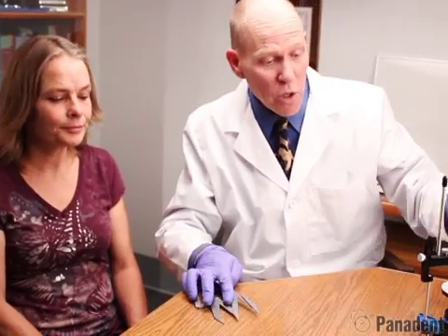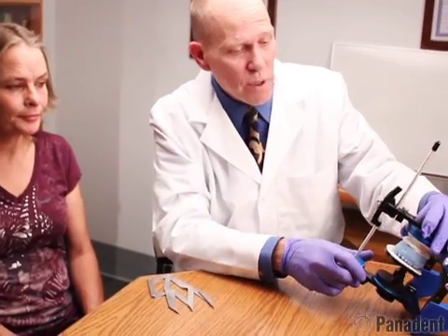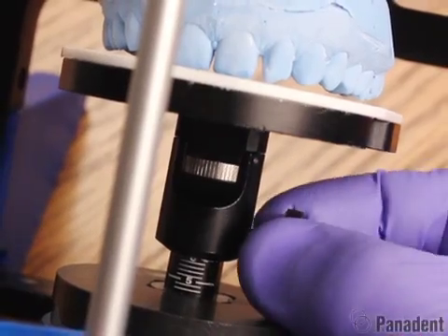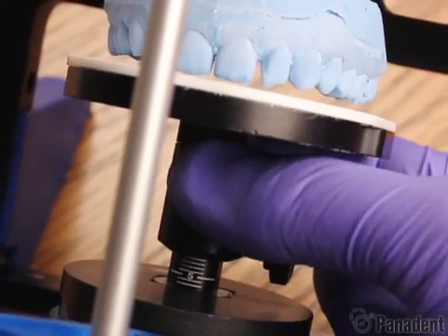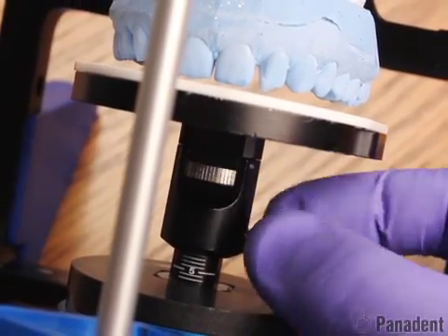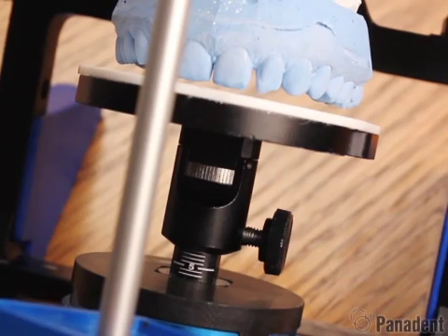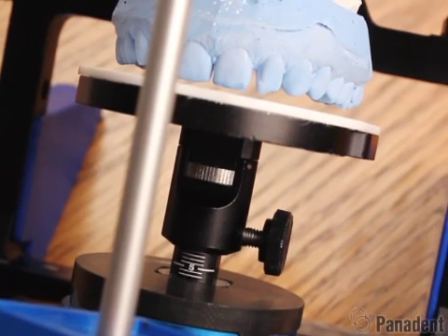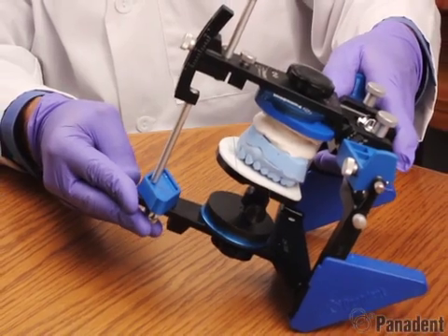If we want to add a millimeter of length to our central incisor, we can come to the articulator. We have the Kois adjustable platform. We can adjust this down one millimeter using the scale on the housing, and this now gives a guide to the technician for adding one millimeter of length to the central incisors.